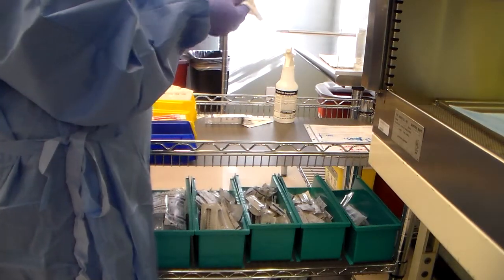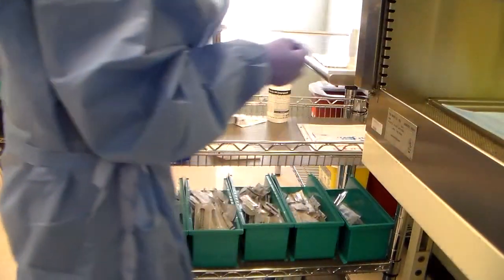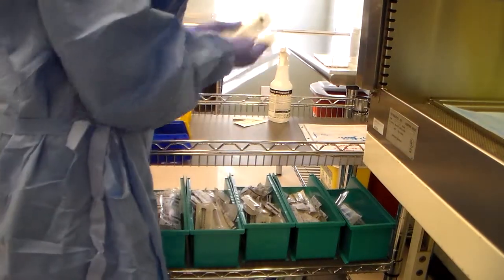Now I'm going to clean my vial. I'm going to put it in the staging area. Now I'm going to clean my syringe.